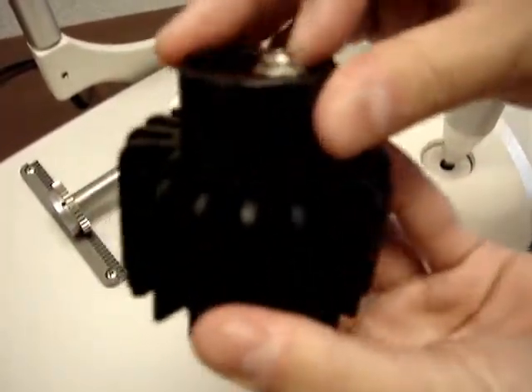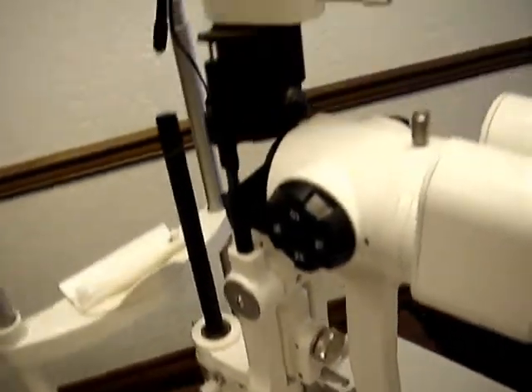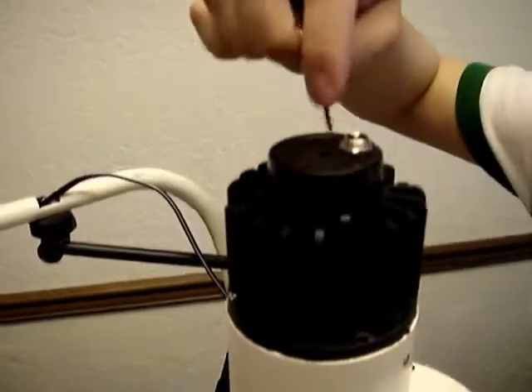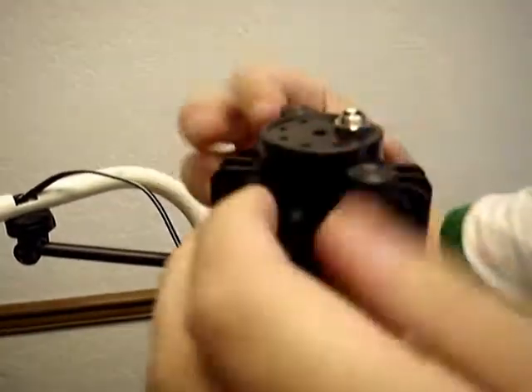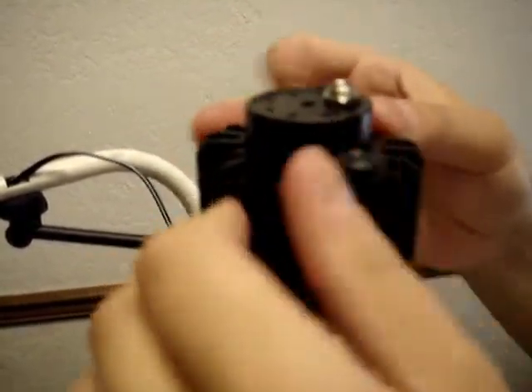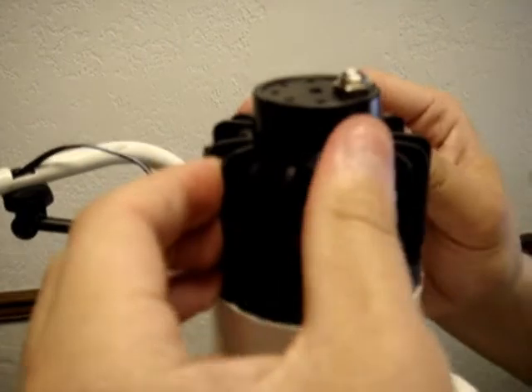Replace the light bulb into the power source in the proper position. You then tighten the first retaining screw. Second, close the lid. Next, you need to orient the light bulb properly. And now, you are going to replace the two retaining screws. Make sure you tighten both equally and at the same time.